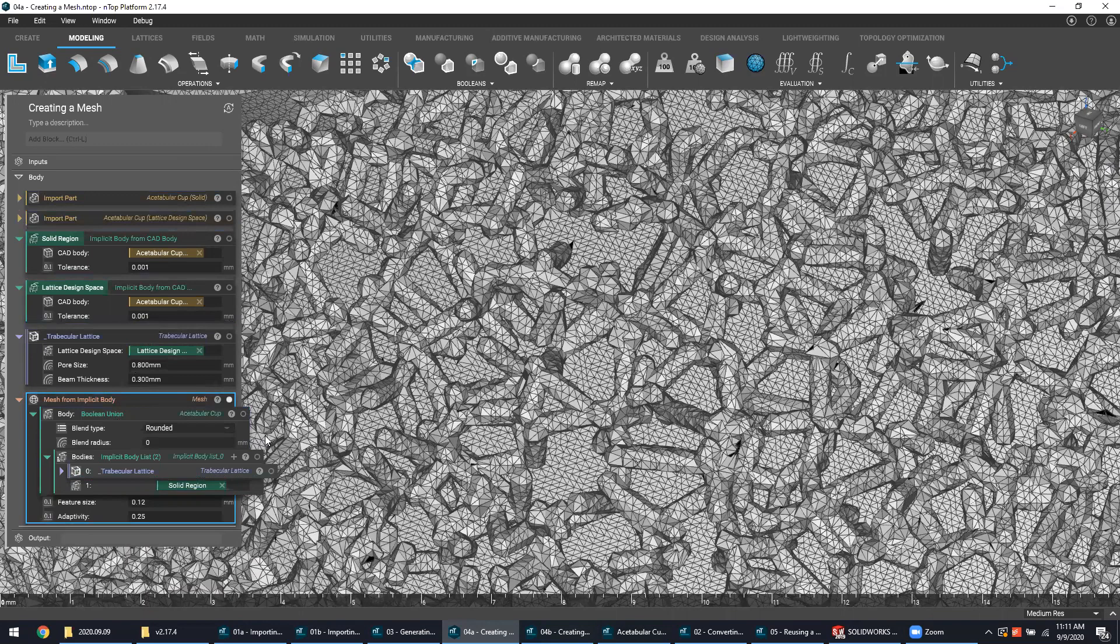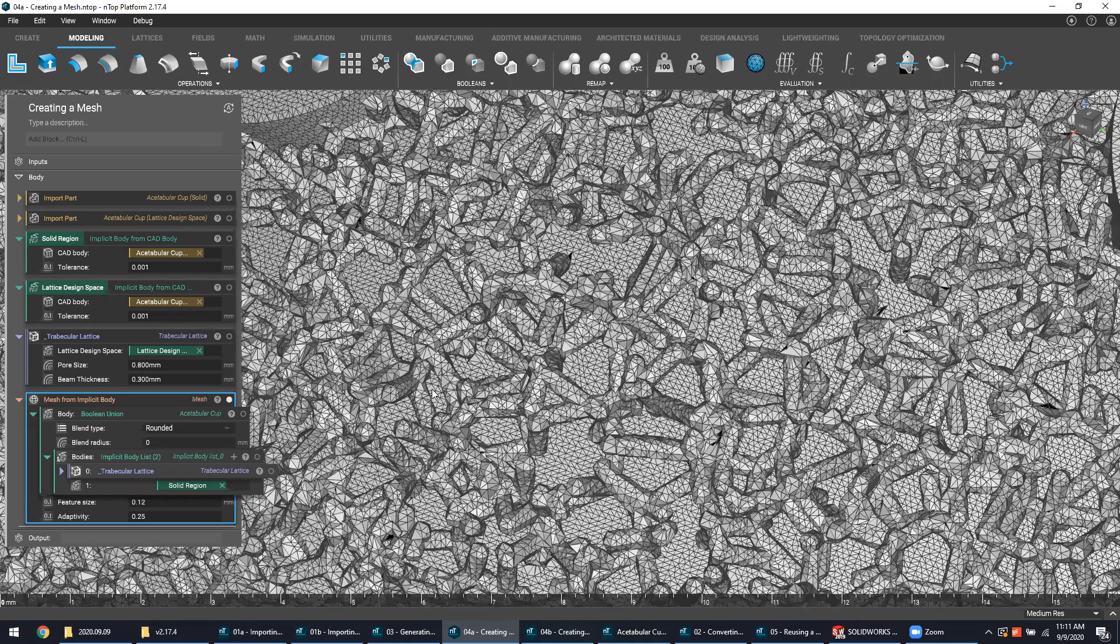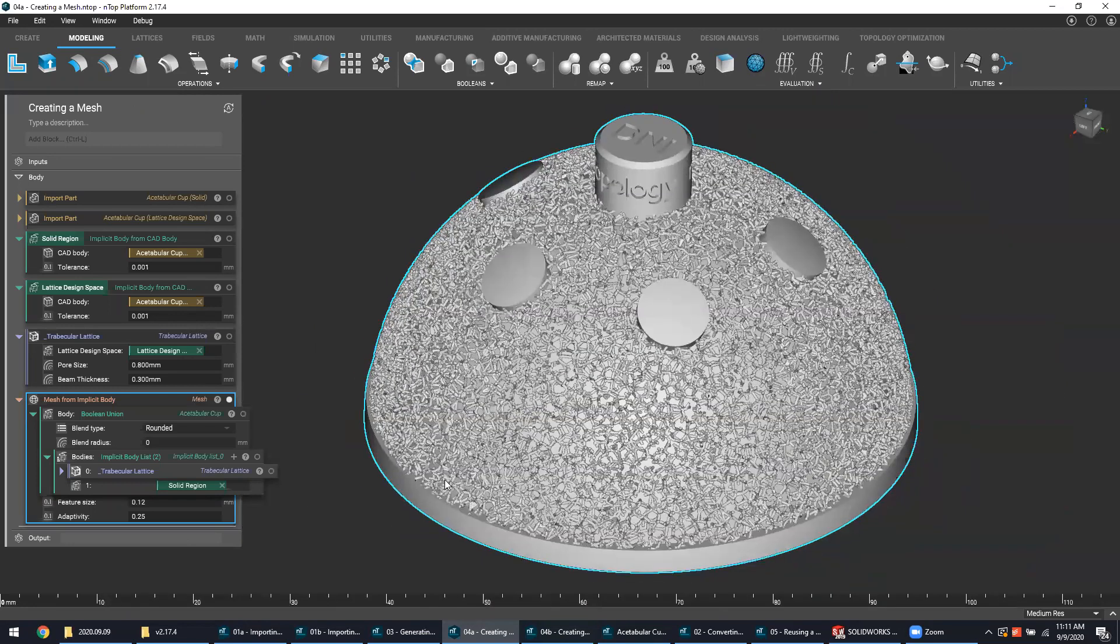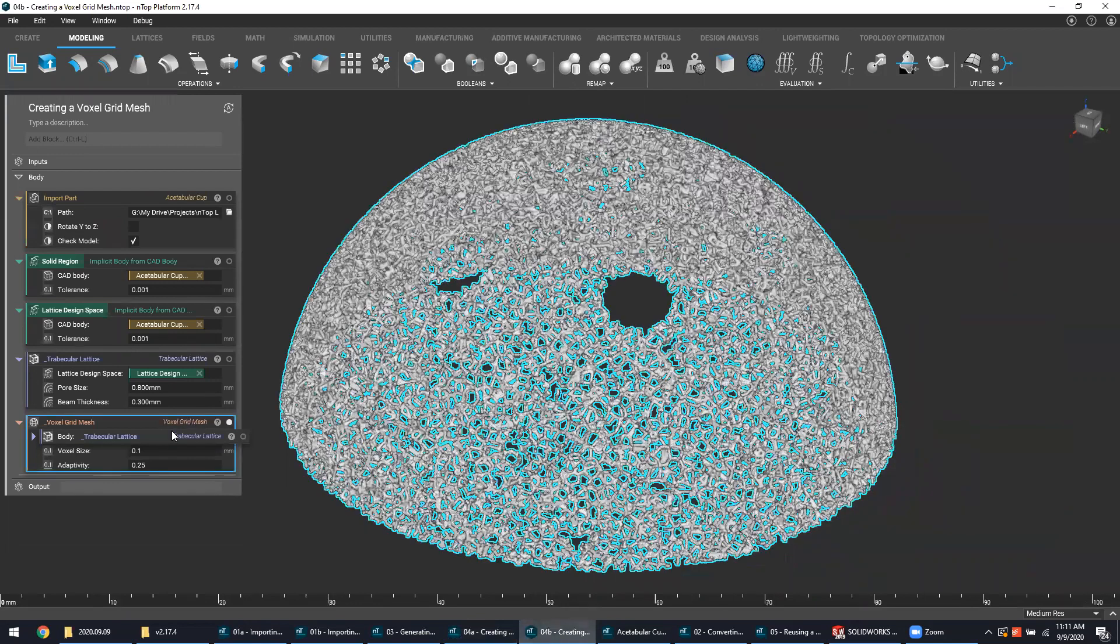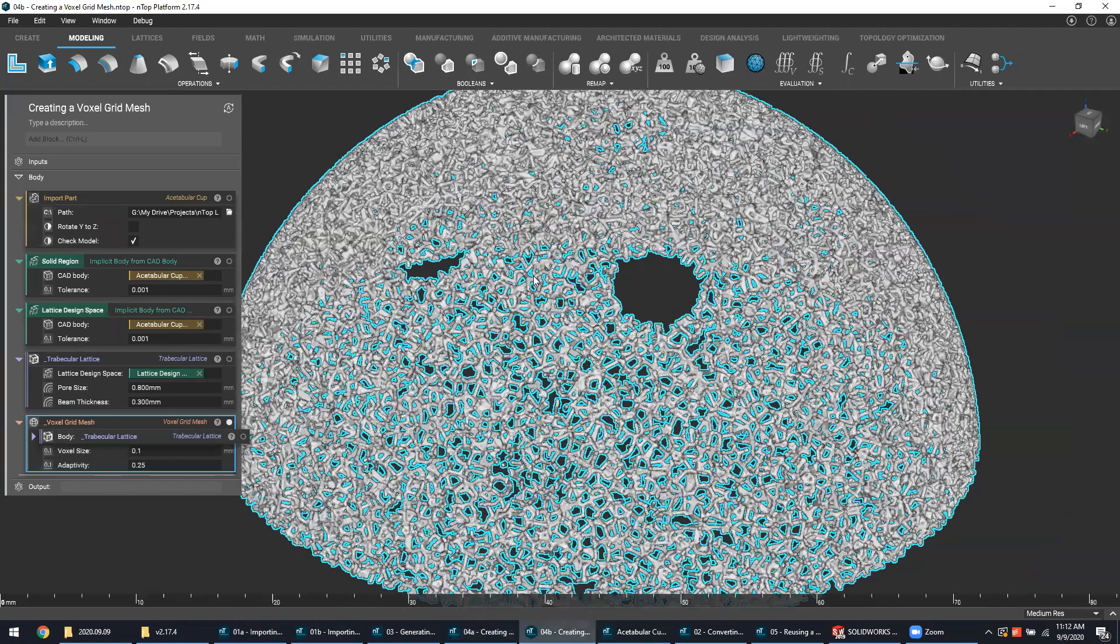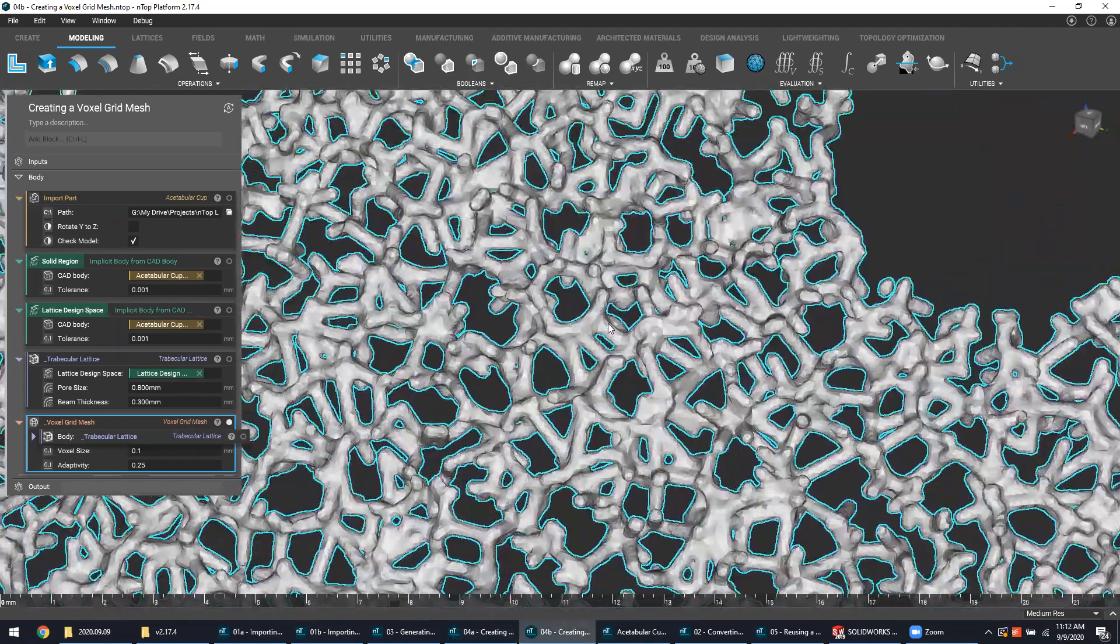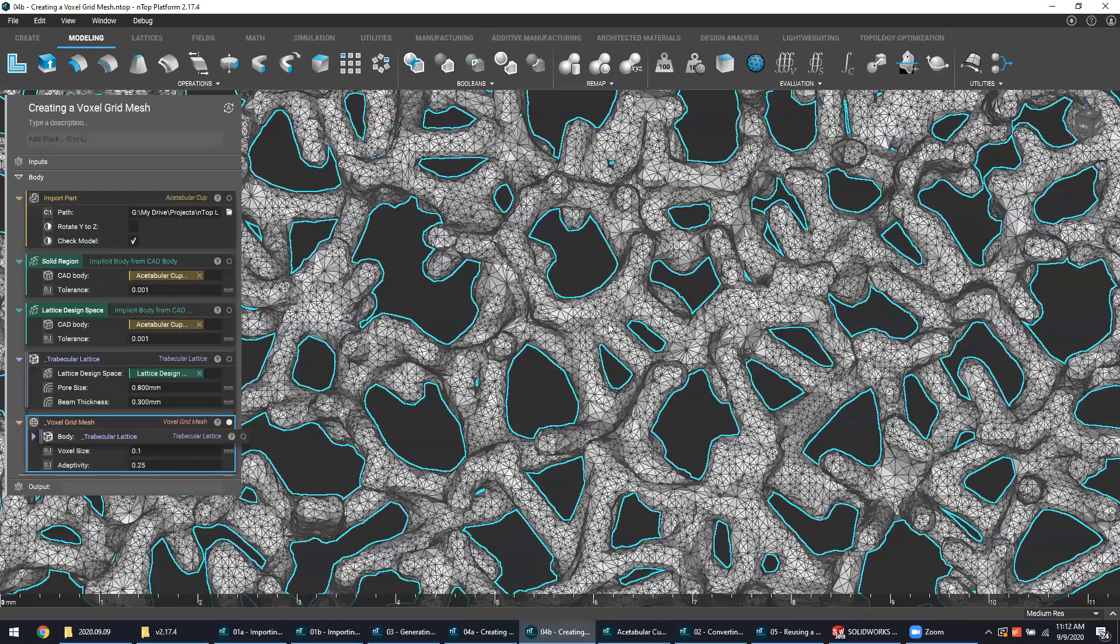Meshing itself is not always a one-click process. Depending on your geometry and application, there are many different knobs and dials that need to be fine-tuned to really get the most efficient mesh that both accurately represents your part but also has an optimal file size. In some circumstances, the meshing strategy can be entirely different. In this variant that I have pulled up, you'll notice that I actually use a voxel grid meshing approach, and the mesh itself looks a little bit different. If I zoom in here and show those triangles, you'll see that the way the triangles are created and the way the geometry is recognized in that meshing algorithm is different from what we saw before. Each approach serves its own purpose and they each come with their own sets of parameters that can be tweaked to output the best results for your needs.